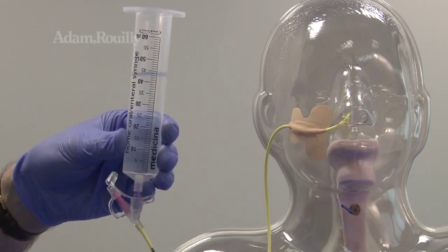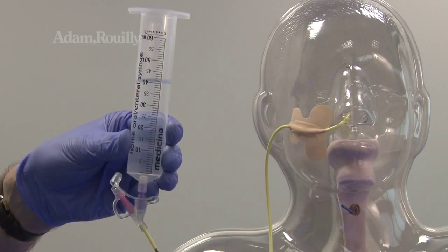Administering liquid, feed, or medication via bolus or pump can be simulated.